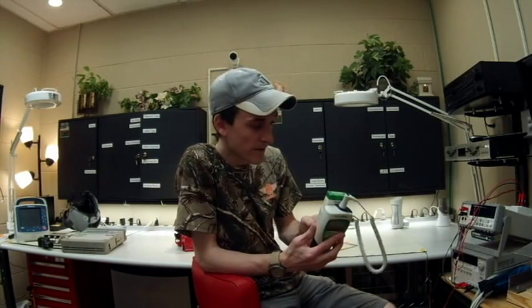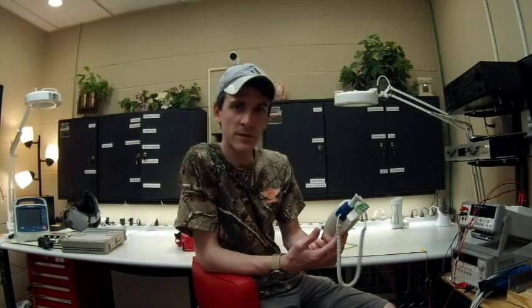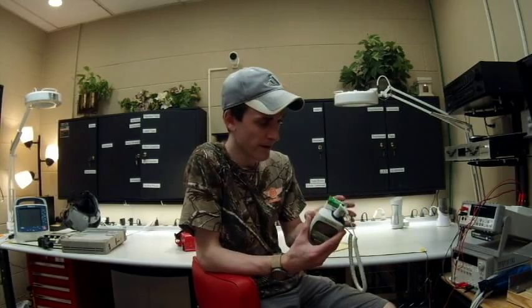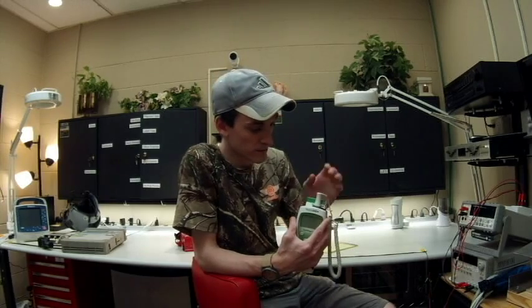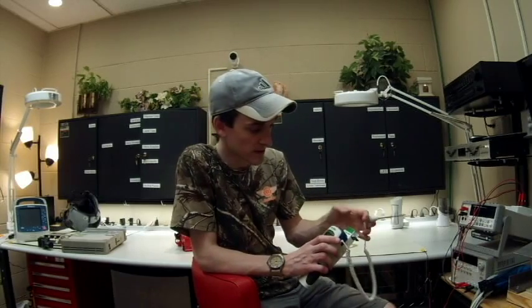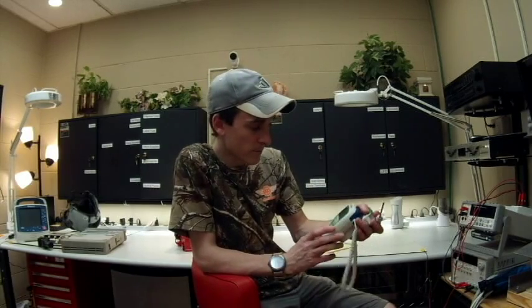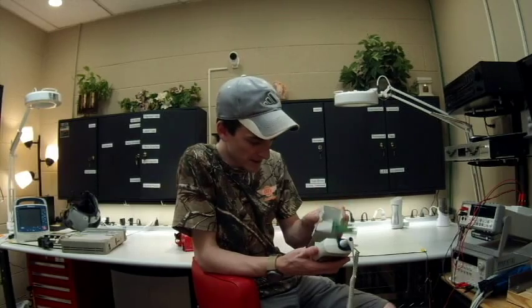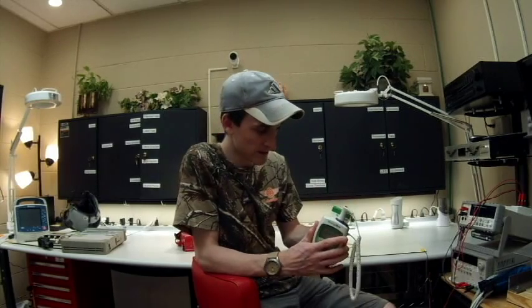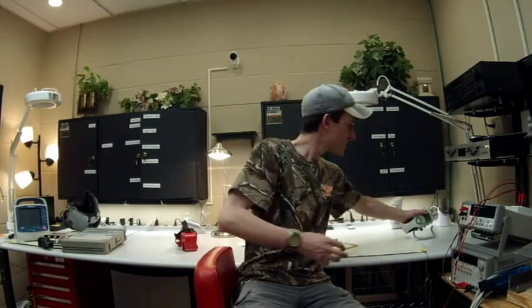It's very portable, very easy to use, and it's actually a pretty good unit. The whole thing is plastic, but there's really not much to it. There's a single switch in there that will actually know whether you're putting a temp probe in or pulling one out, and it will know which one is a rectal probe and which one is an oral probe. The red ones are rectals. Very easy to work on — it takes three AA batteries and that's really it.